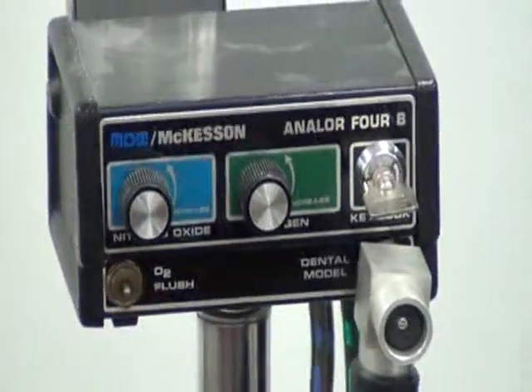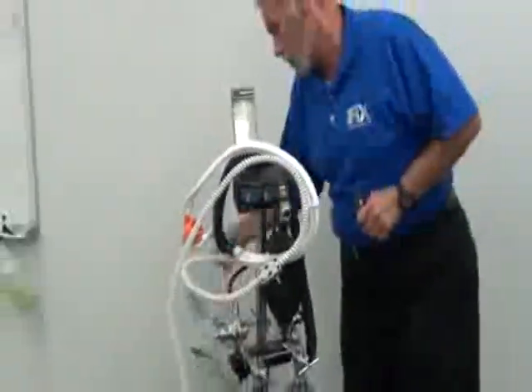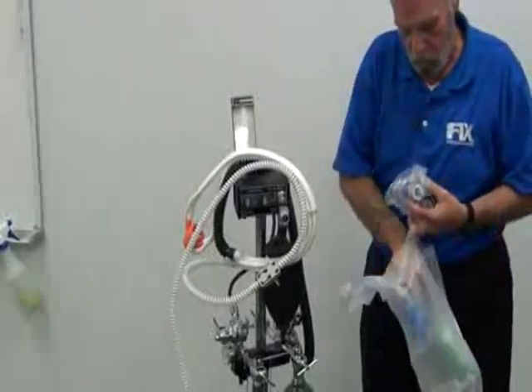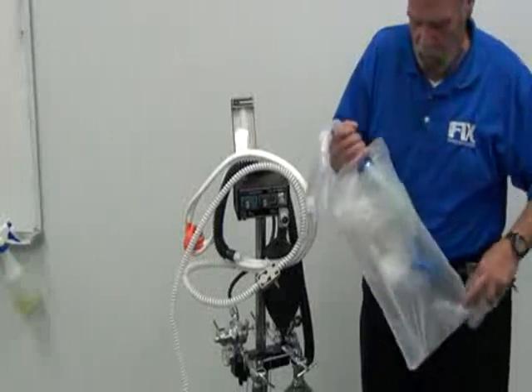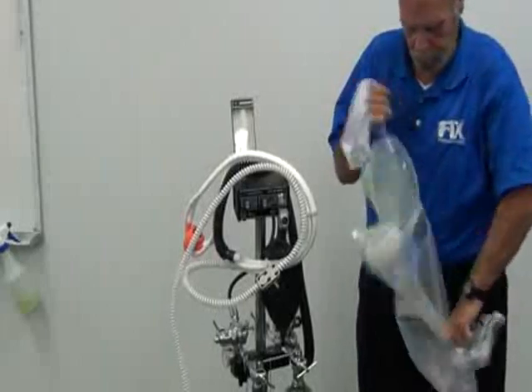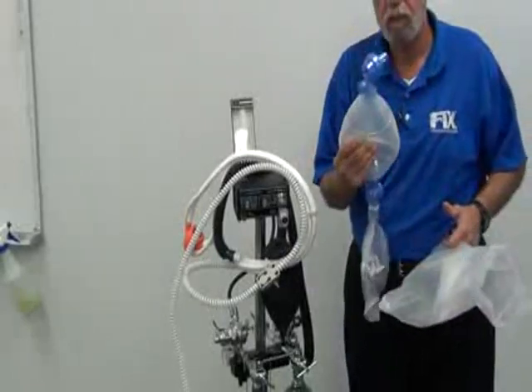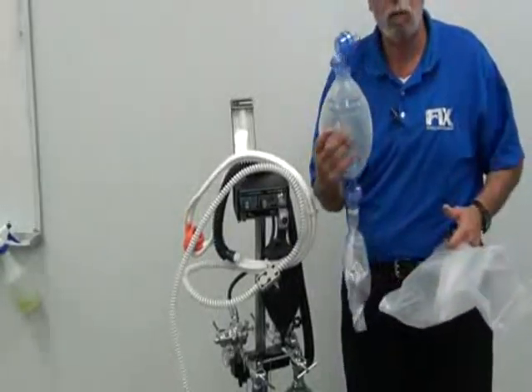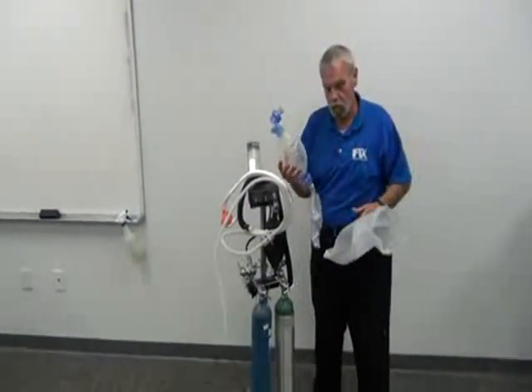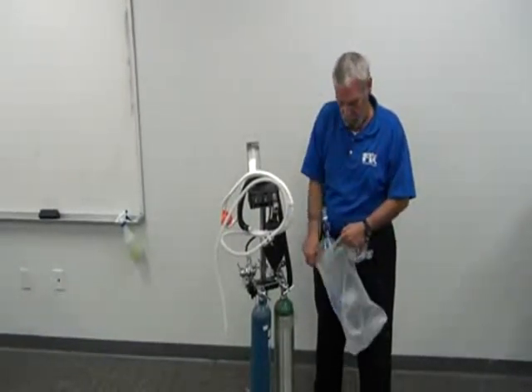At all times when nitrous oxide is administered, there must be a resuscitator in the office. This is called an ambu bag or a manual resuscitator. You've all seen them on TV in the ambulances. It goes over the patient's face with a nose piece. The bag is squeezed to respirate the patient or to make the patient breathe. This apparatus must be used in conjunction with the nitrous head for the administration of nitrous oxide.